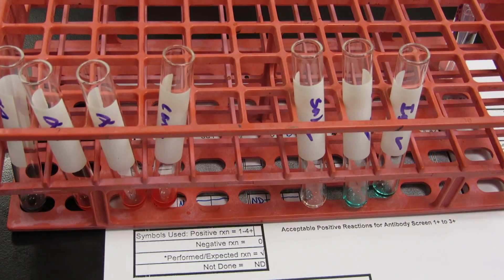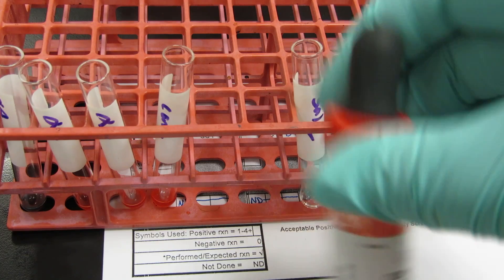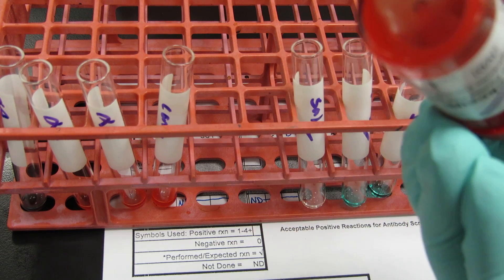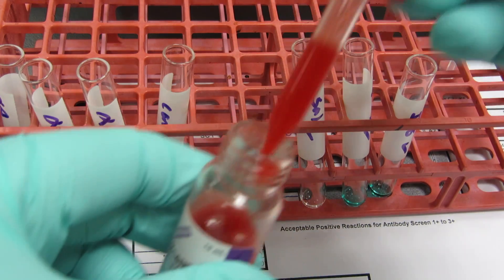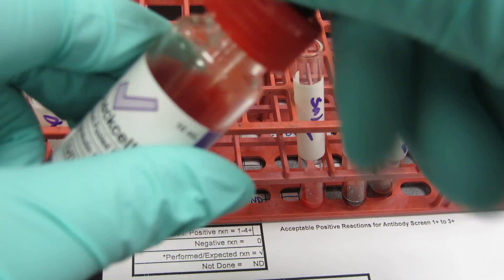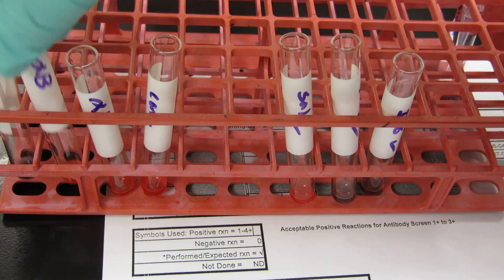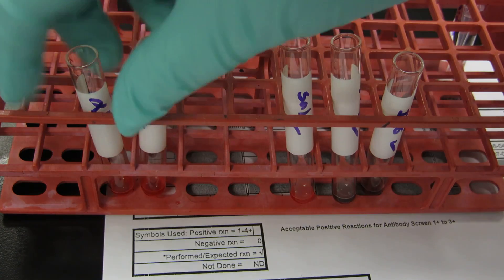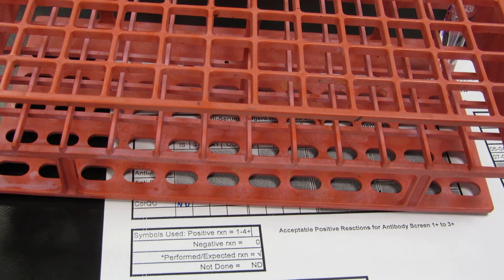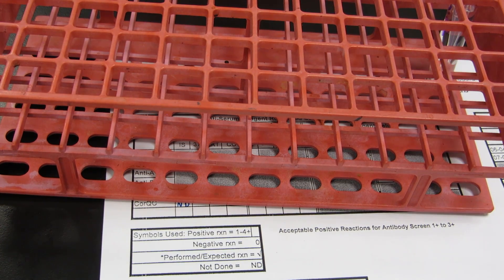All three of these DAT tubes are going to get those Coombs control cells, so I'm going to mix my Coombs control cells up. We use one drop, so I'm just going to go down the line: drop, drop, drop. Now I'm ready to spin these. I'm going to need a balance because I have seven tubes, so I'll just use an empty 10 by 75 — there's not much volume in these tubes, so an empty one is fine. If I were washing, you would need to make sure there's saline in it. Spin for 20 seconds.